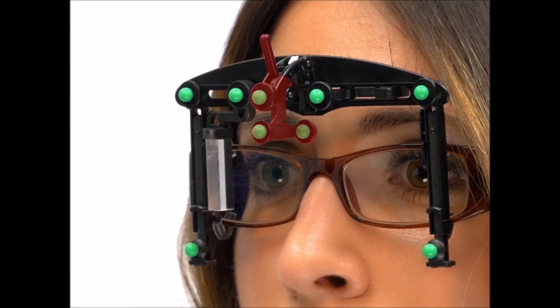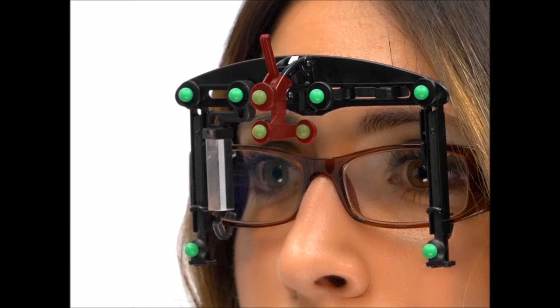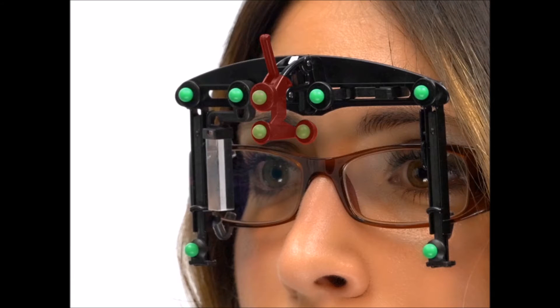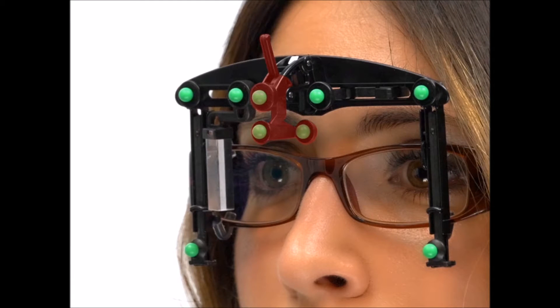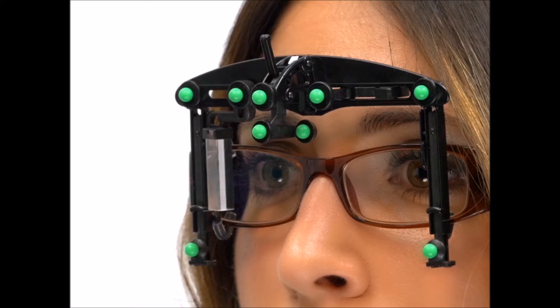The patented posture swing assembly allows the height measurements to take into account the patient's natural posture.